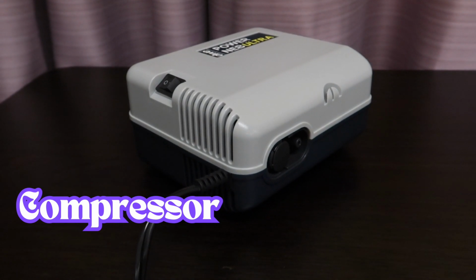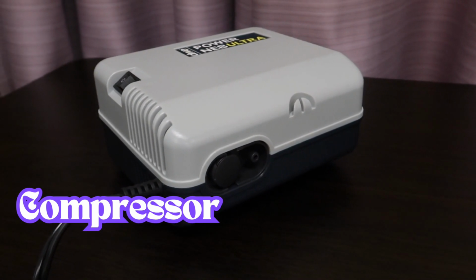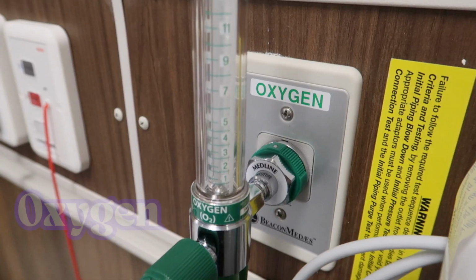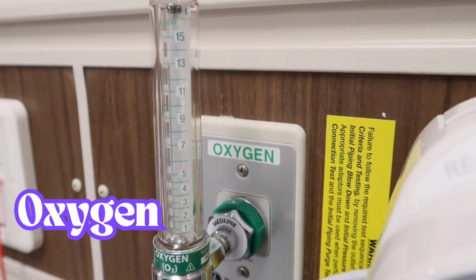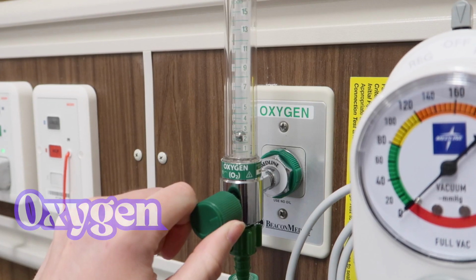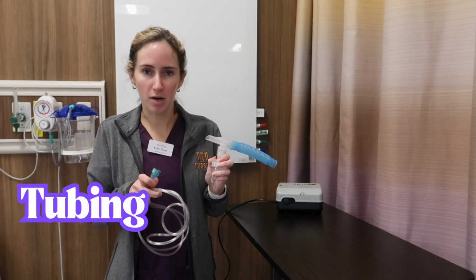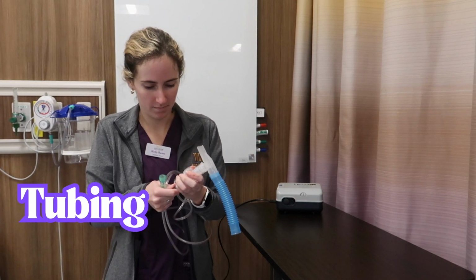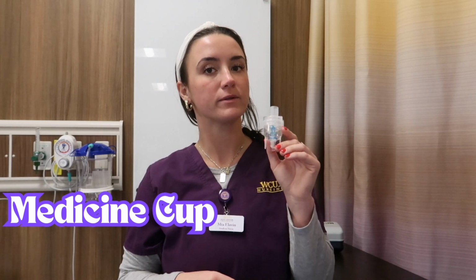Compressors are designed to compress the air that flows through the medication cup and convert the medication into a mist that can be inhaled. A nebulizer can also use oxygen to convert the medicine into aerosolized particles that can be inhaled from the mouthpiece or face mask. The tubing of the nebulizer is connected to the nebulizer and the compressor. The medicine cup holds the liquid medication that will be converted into a mist.